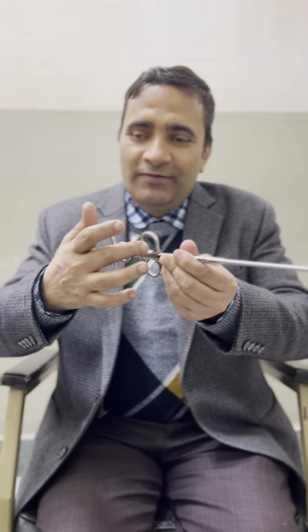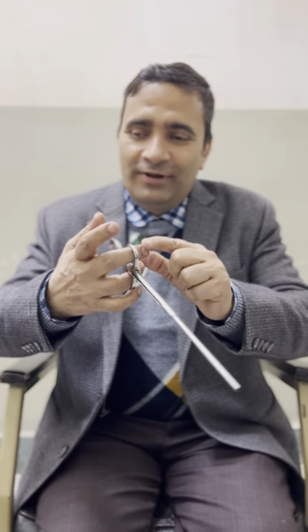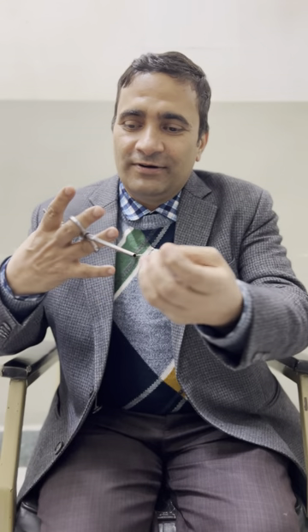This is held with the right hand, the dominant hand. You have to insert two fingers — the middle finger and the ring finger — in two holes, and the thumb in the upper hole. When you press or release it, the snare will open. This is the snare wire.